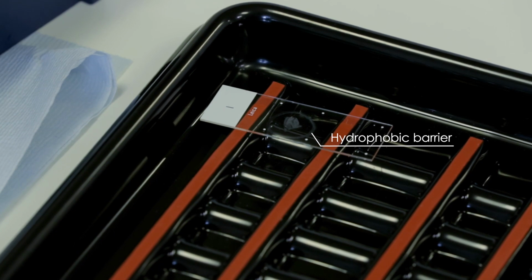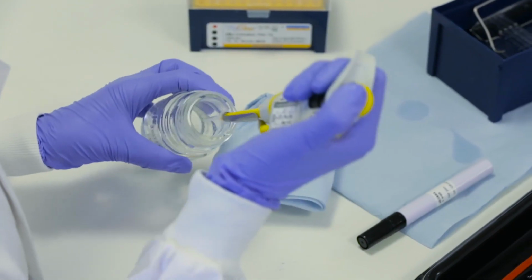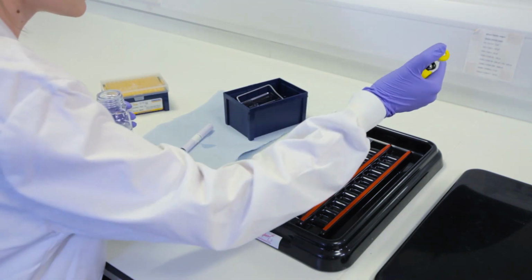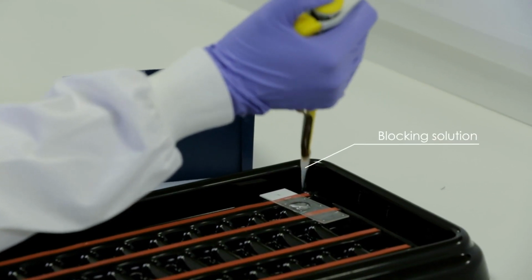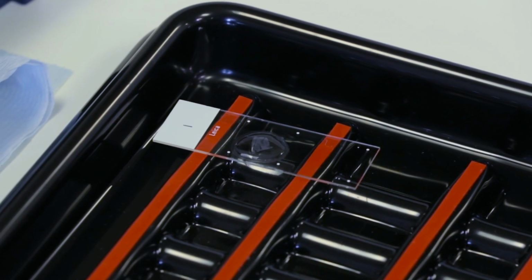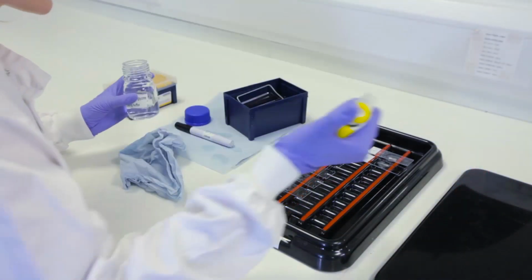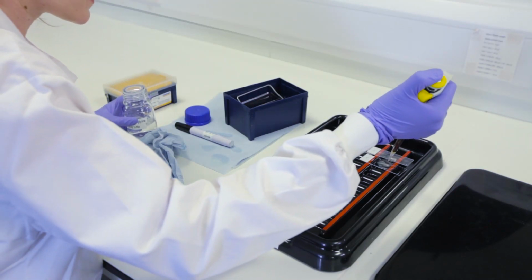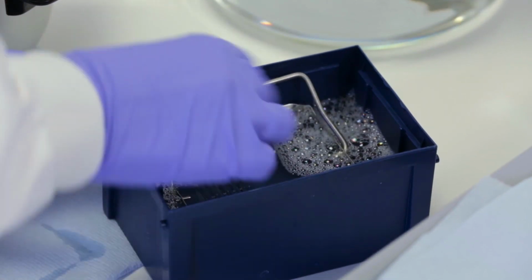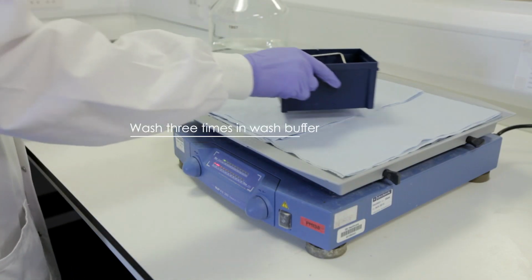Depending on the type of IHC being carried out and the type of tissue being analysed, additional blocking steps might be needed. In this case, a peroxidase secondary antibody is being used. Therefore, endogenous peroxidase enzymes present in the tissue also need to be blocked. After this step, the slides are washed again 3 times in wash buffer.